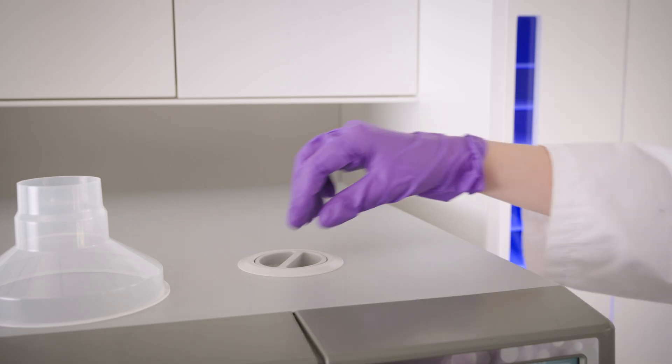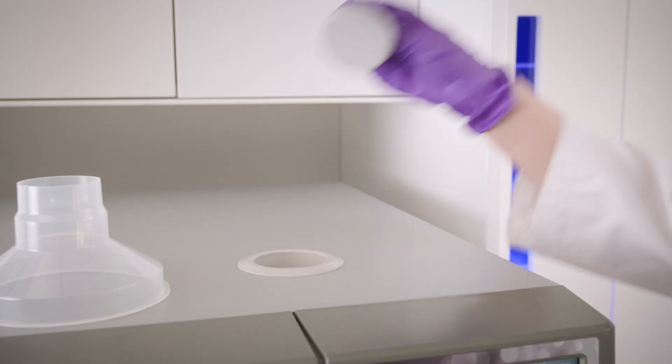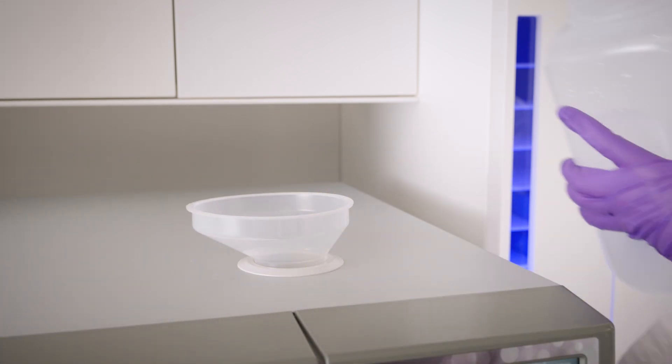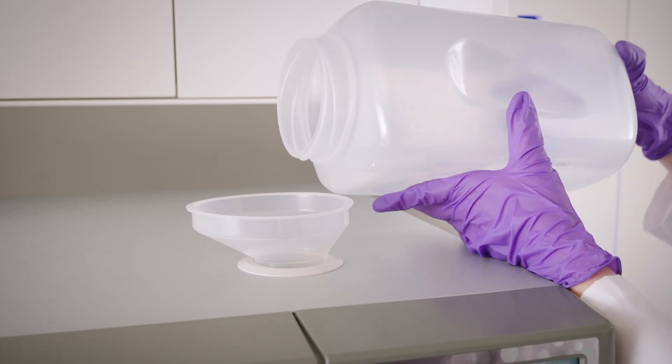The Bravo G4 offers numerous manual and automatic filling options. With the unit powered on, manually fill your unit by removing the top cap and use the funnel provided to carefully pour demineralized water into the reservoir.